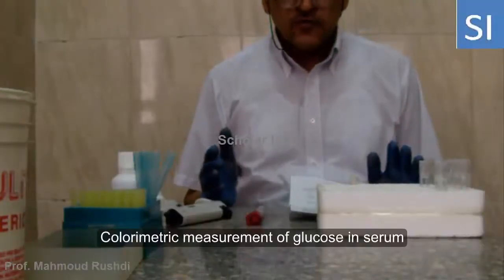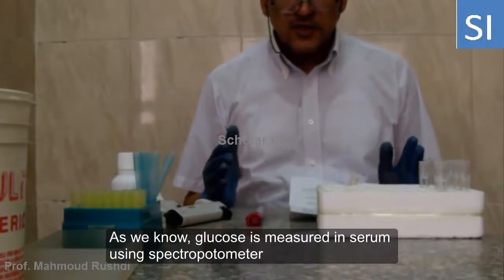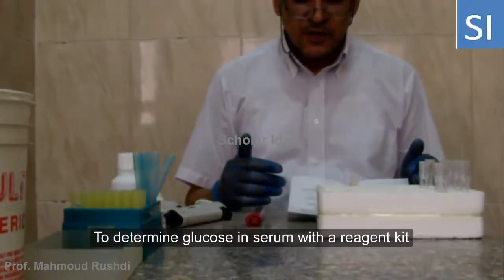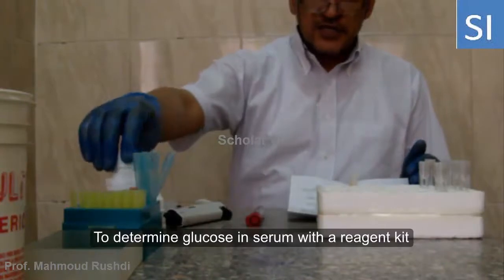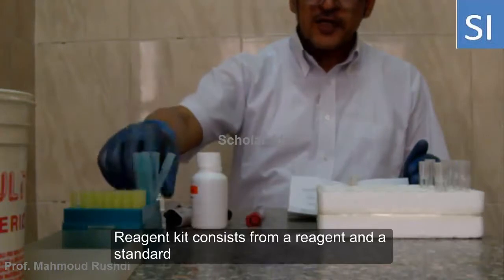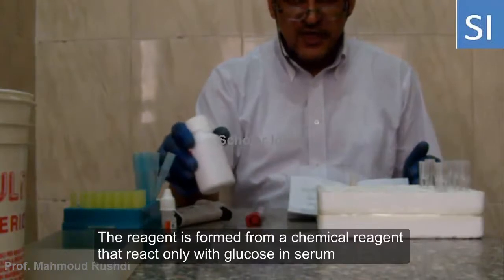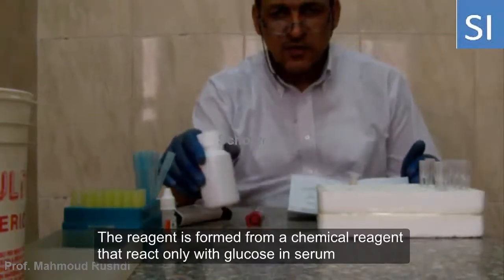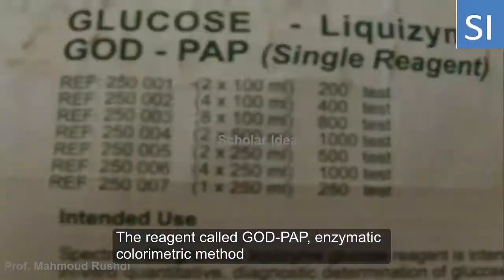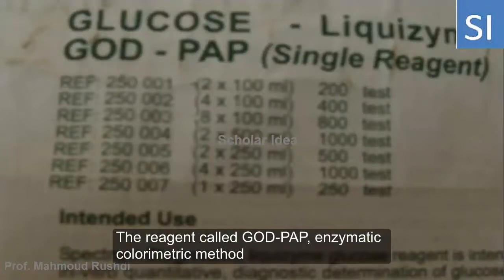Welcome to the measurement of glucose. Every glucose measurement using a spectrophotometer requires a reagent kit. The reagent kit consists of a reagent and a standard solution. The reagent is composed of a chemical reagent that acts only with glucose to form a colored product. This method is called the GOD-PAP enzymatic colorimetric method.